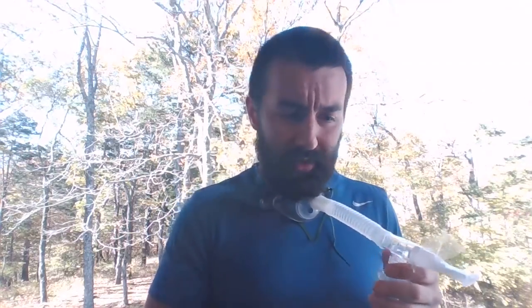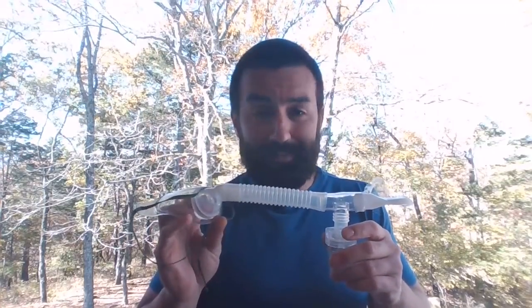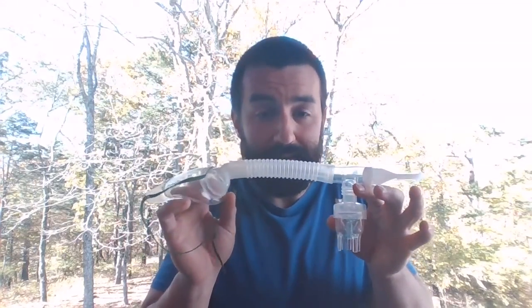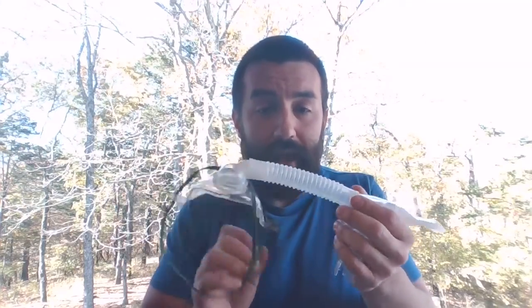I could rig up some stuff as well if I go down in the department, find some different adapters and start piecing some things together. I could make something that looks a little bit more professional. But this is not just some weird random stuff I do. It's pretty much standard practice if you're running nebulizers like this. So this would be how you do it for a trach patient with a standard jet nebulizer.